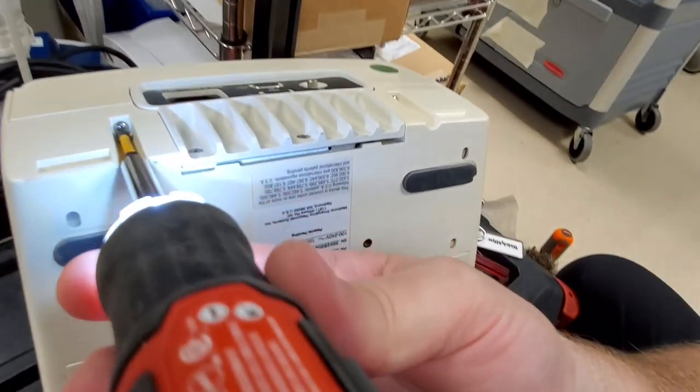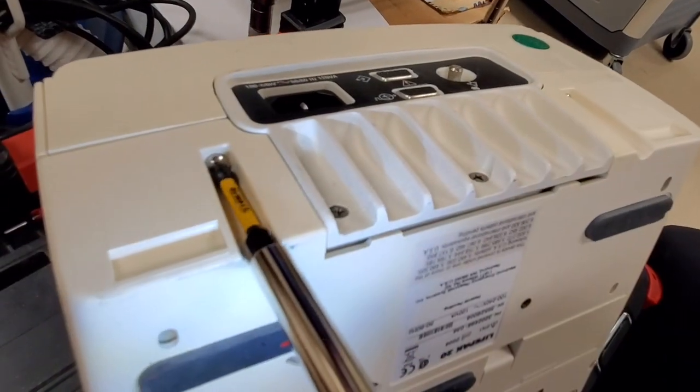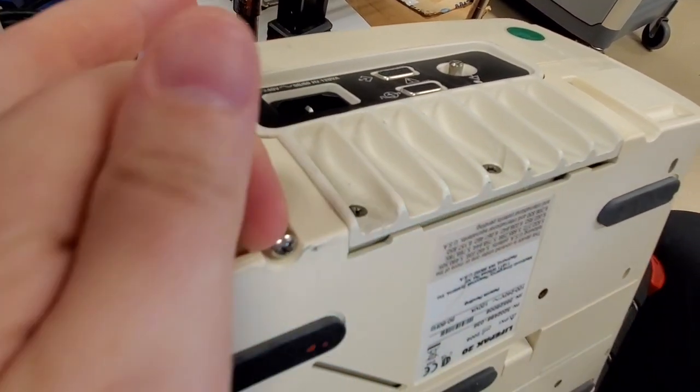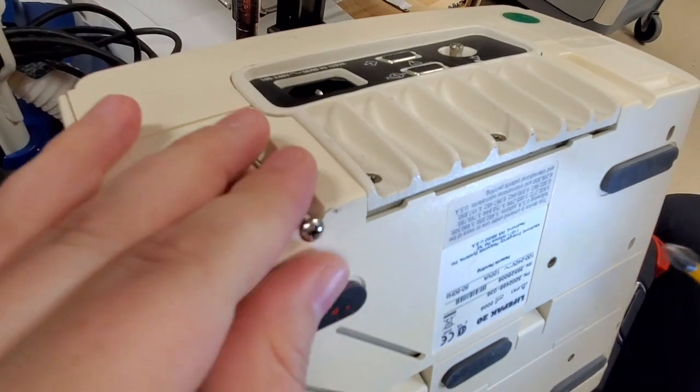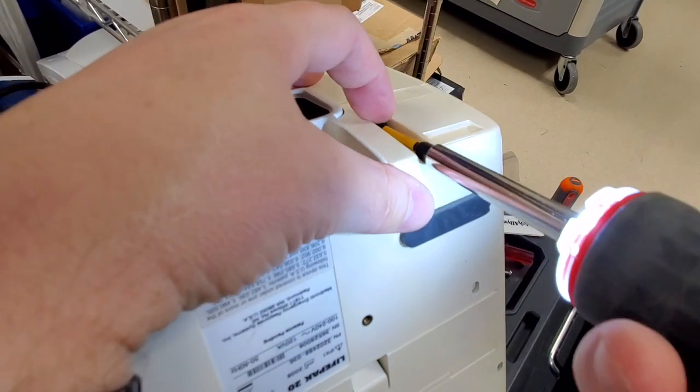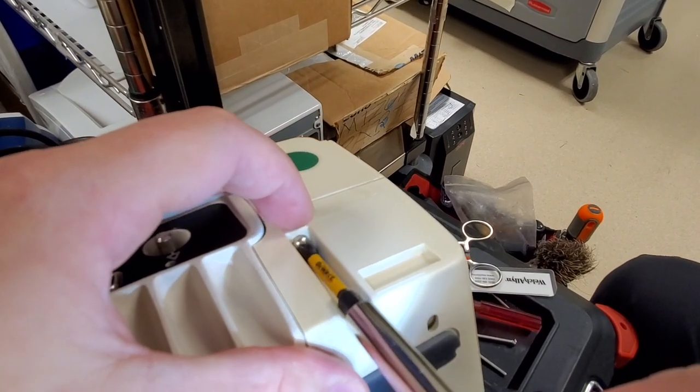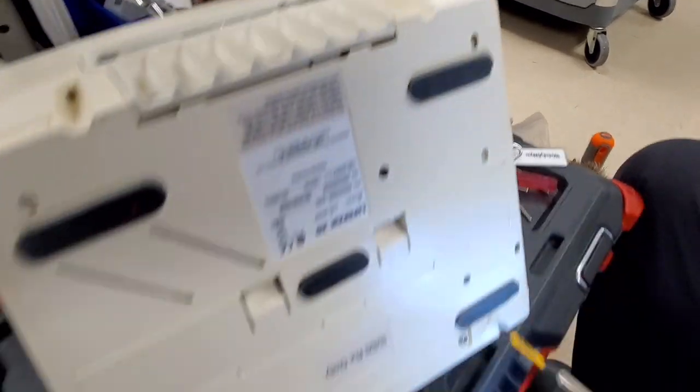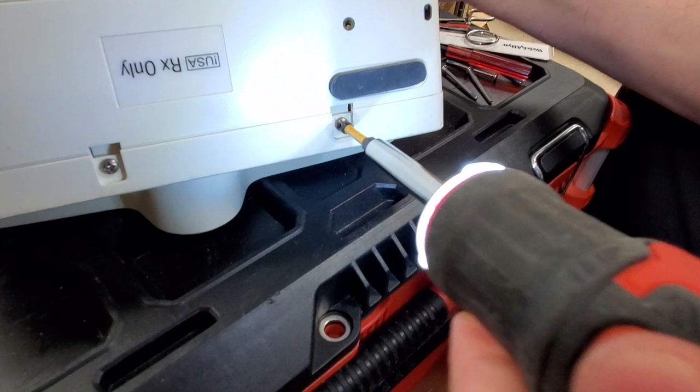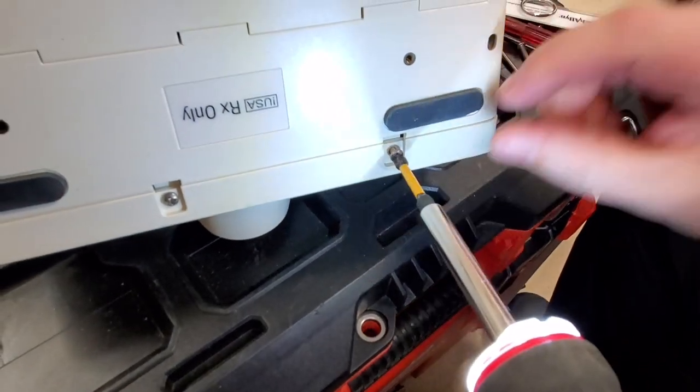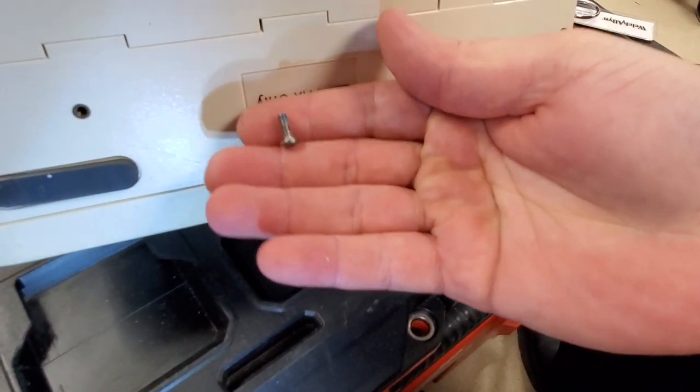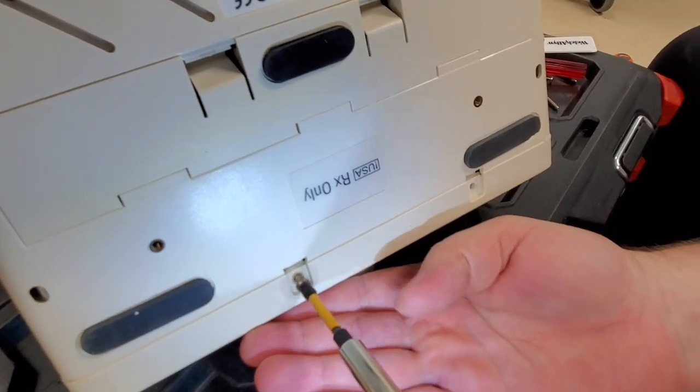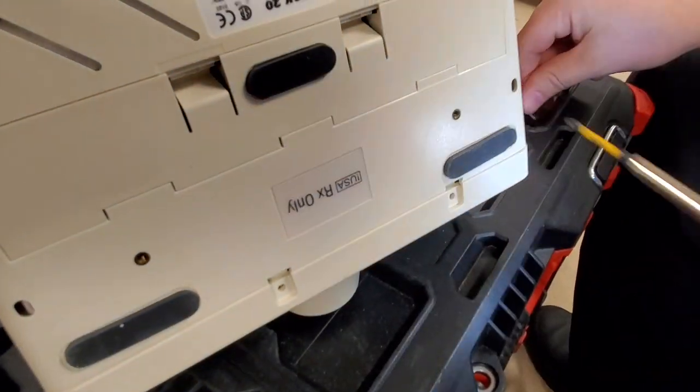Let's go to the two bottom ones right here. See how I just put my finger on the top of it and kind of push out as it's spinning? That gets it out of its seating position. Okay, just guide it up with your fingertip. Now the last two right here. Now mind you guys, these are the short ones. Alright, there we are.